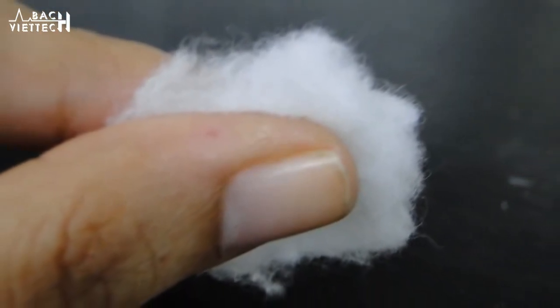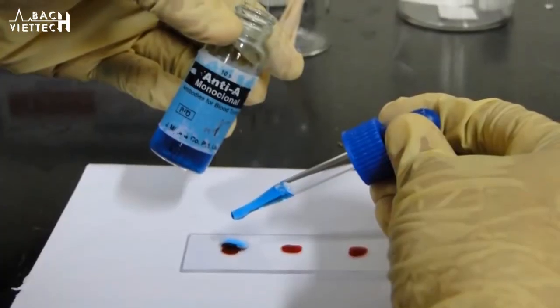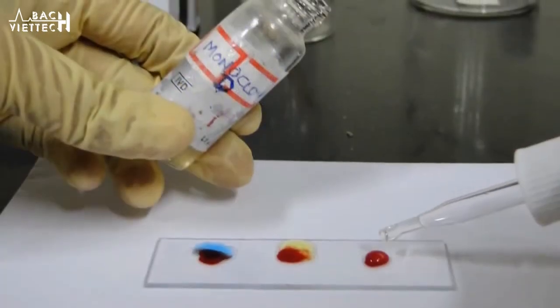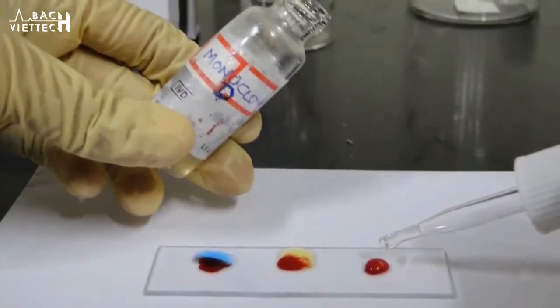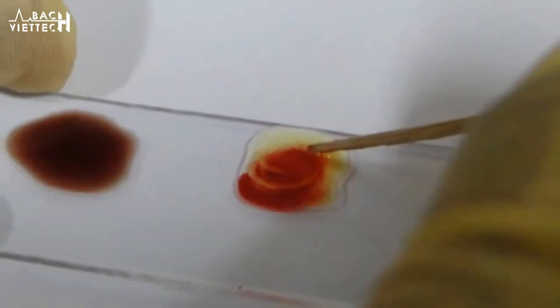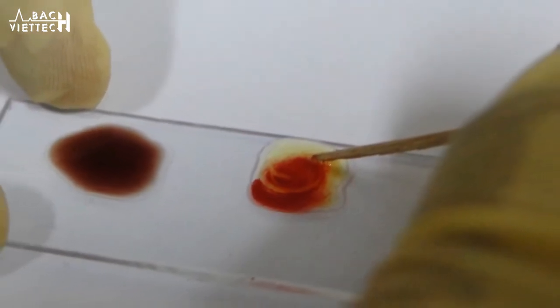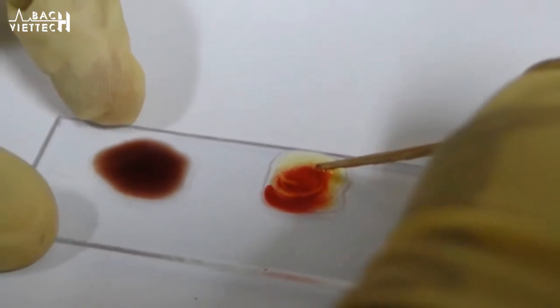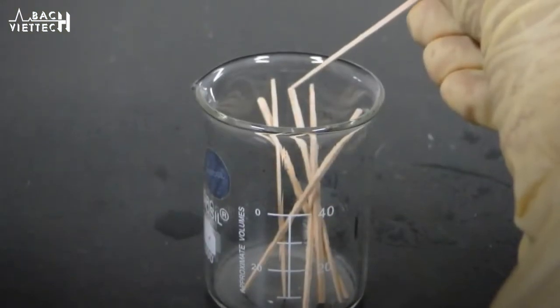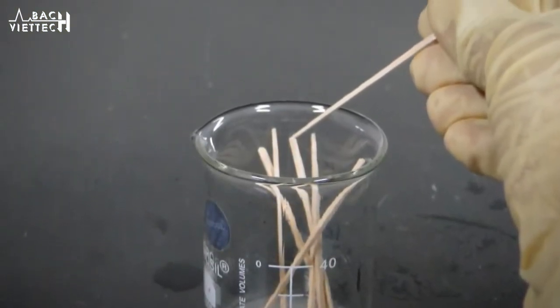Pour one drop each of anti-A, anti-B, and monoclonal D on each drop of blood respectively. Mix the monoclonal antibodies with the blood sample properly using a toothpick, making sure to take a new toothpick for mixing each drop.